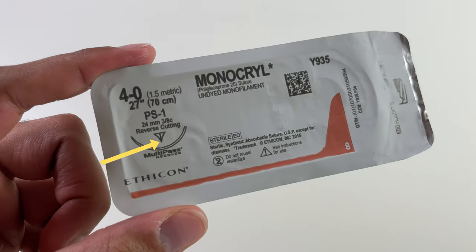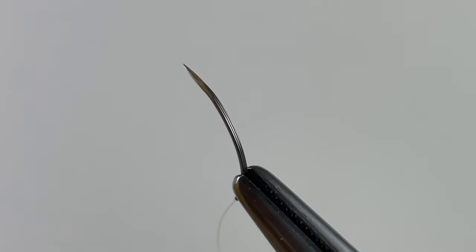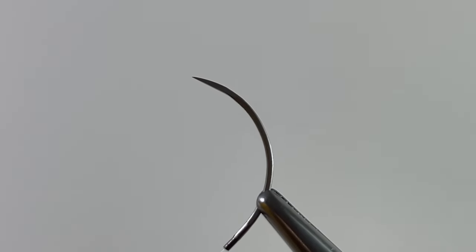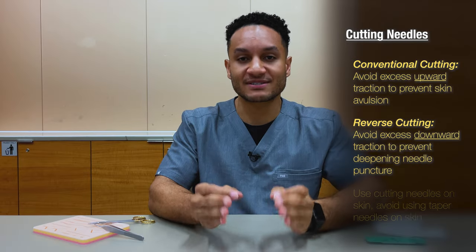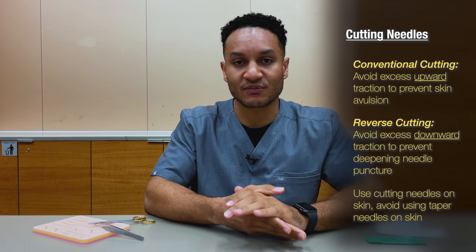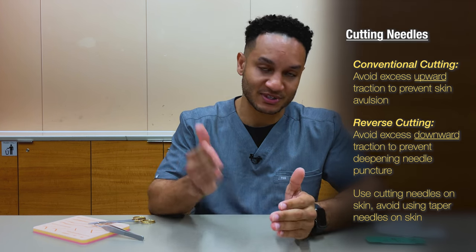With reverse cutting needles, the third cutting surface is on the outer curve of the point. Reverse cutting needles should be used with care because excessive downward pressure when driving the needle through the skin can result in a deeper bite than intended. Either conventional or reverse cutting is ideal for cutting through tough tissue such as skin, since skin tolerates cutting wounds much more easily than pressure wounds — which can result from tapered needles as they spread rather than cut through tissue. Cutting needles can also be used in ligaments, the oral cavity, and the nasal cavity.